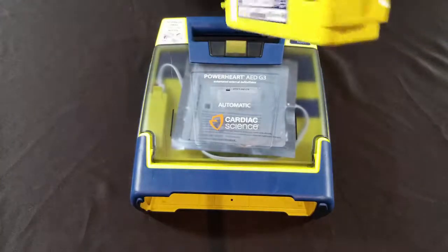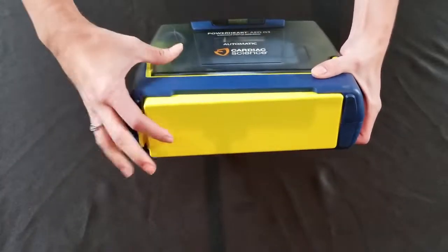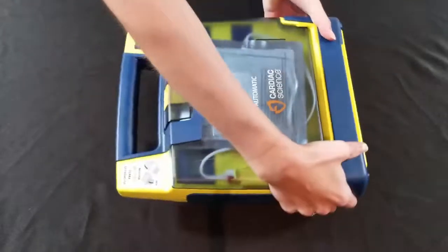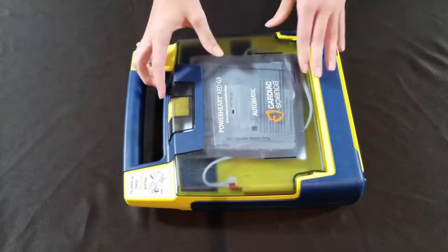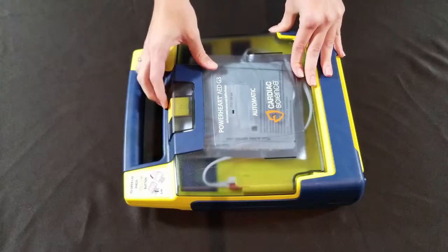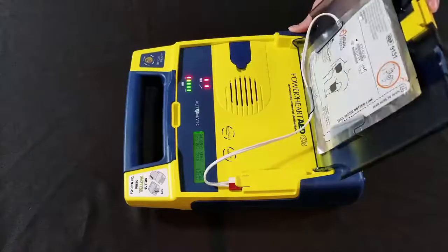Take your new battery, slide it into the bottom of your device, and press down until you hear a click. Then you'll need to open your device and let it talk to you — don't be alarmed. Press the yellow button, open the lid, and let it talk.